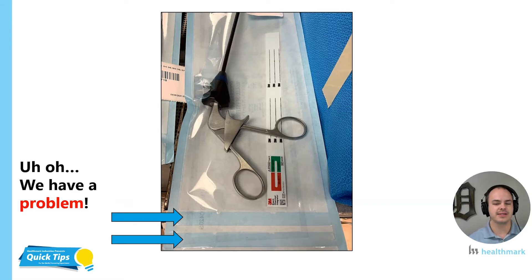Adding that second seal really isn't going to help you. It's not getting to the root cause of the problem. I wanted to share a second observation with these heat seals in particular — it might be a little hard to see, but there are defects in this heat seal. There's one right there and there's another one. Additionally, those defects reproduce themselves in the seal below it. So now you have two heat seals that both have defects in them. We have a problem that we're just reproducing — we're not fixing it, we're not getting to the root of the problem.